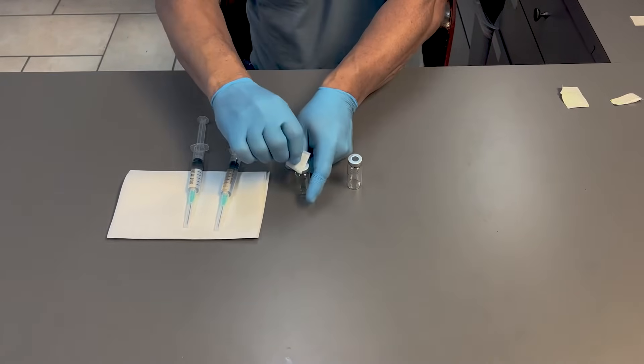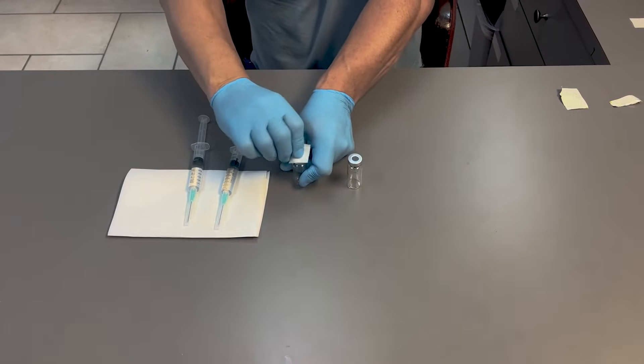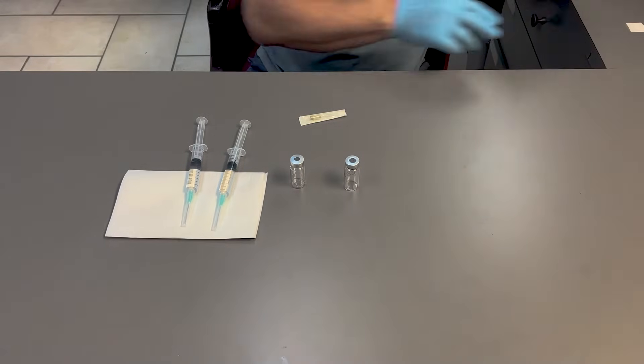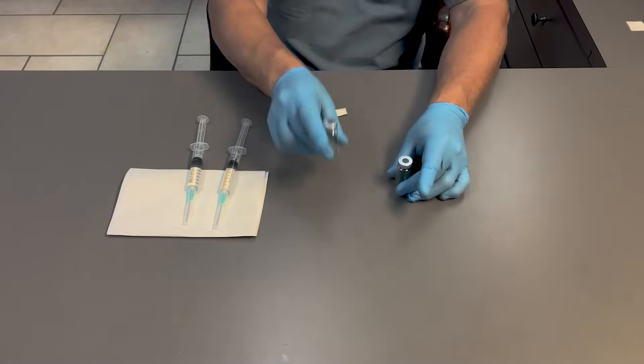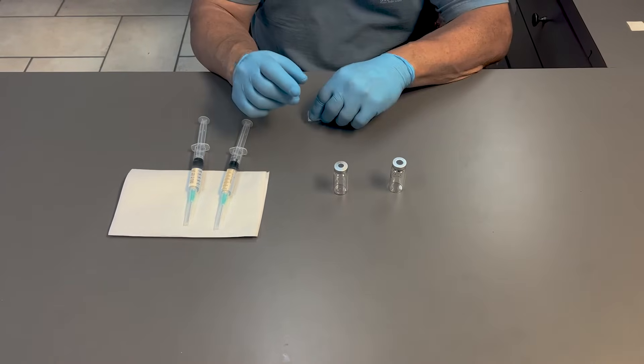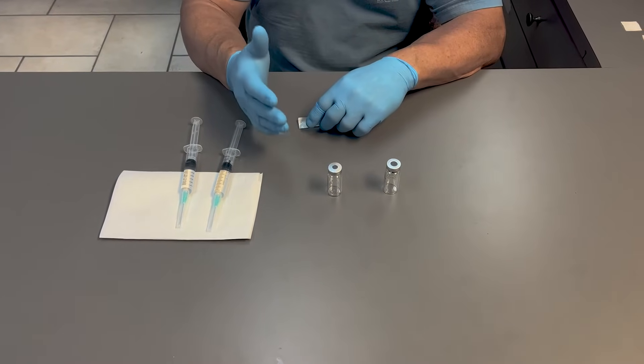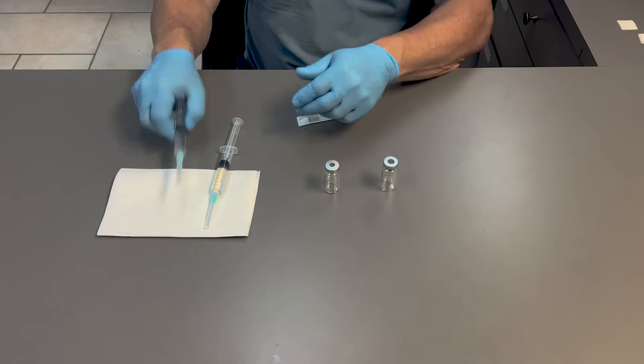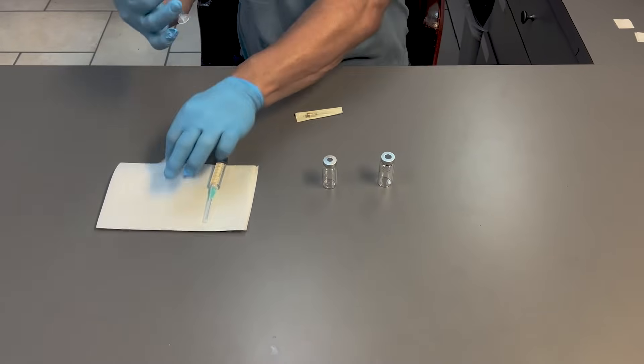A significant difference is in order to fill a standard sterile vial with a neutral atmosphere inside, you will need to vent it, otherwise there will be no way to fill it. And I'll demonstrate that.